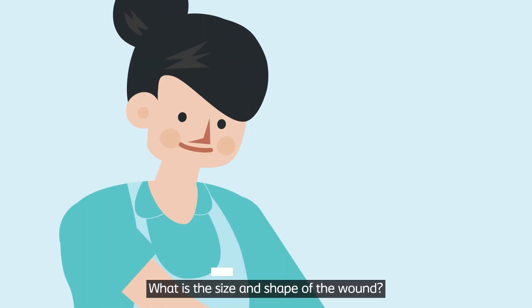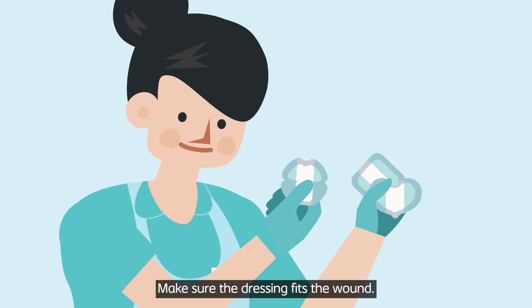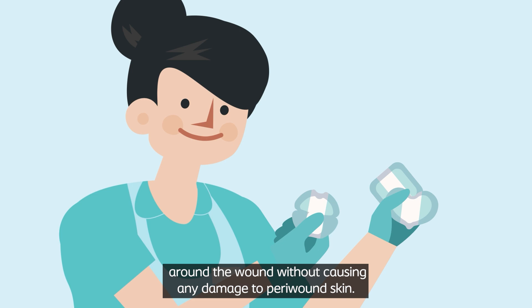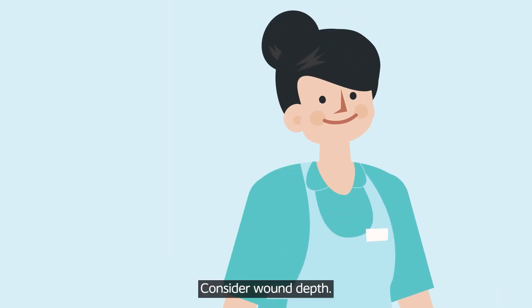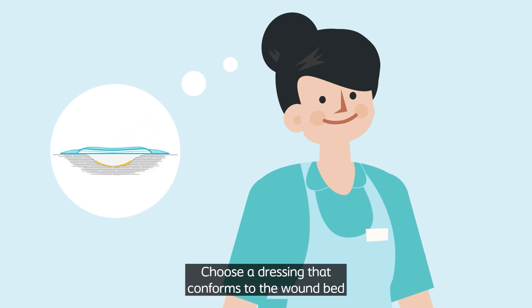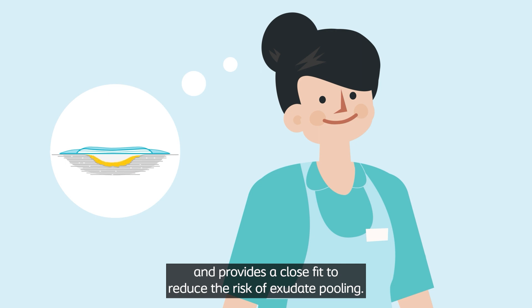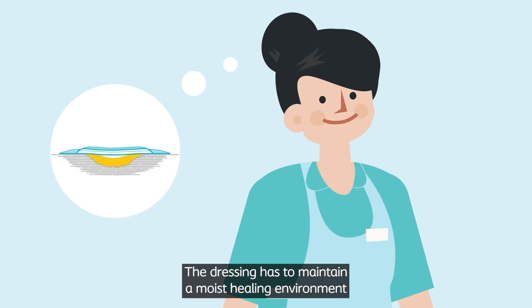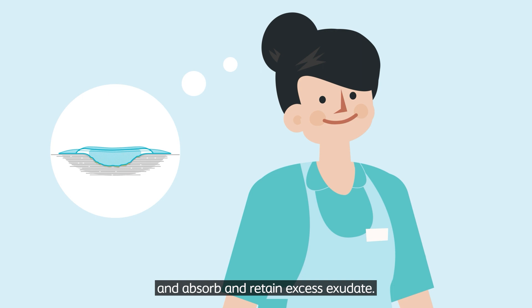What is the size and shape of the wound? Make sure the dressing fits the wound — it will allow you to secure it to clean and dry skin around the wound without causing any damage to peri-wound skin. Consider wound depth: choose a dressing that conforms to the wound bed and provides a close fit to reduce the risk of exudate pooling. What is the level of exudate? The dressing has to maintain a moist healing environment and absorb and retain excess exudate.